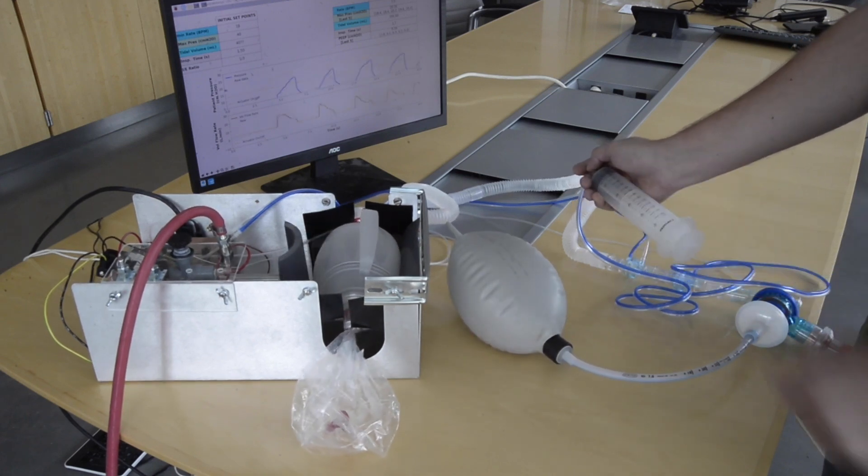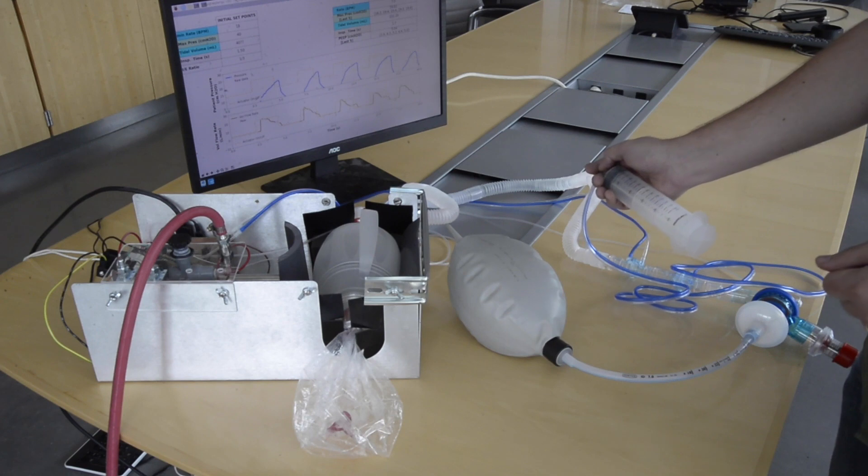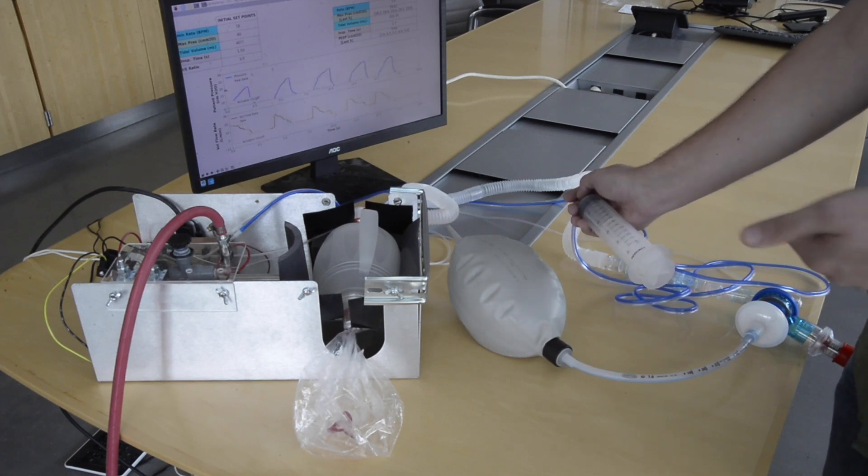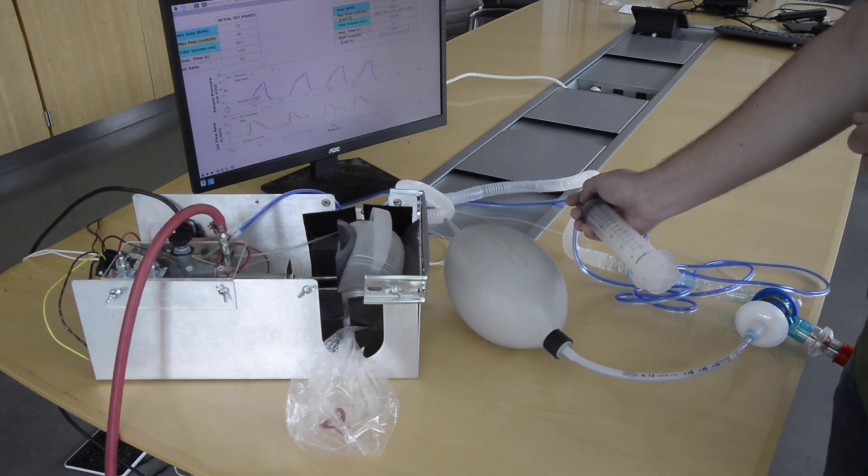However, if the patient stops breathing again, we can resume that minimum breath rate so the ventilator will automatically breathe on its own.